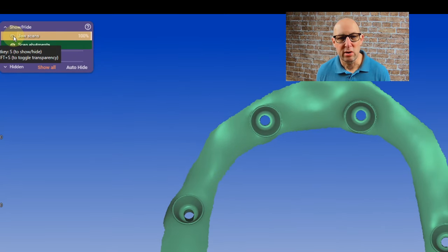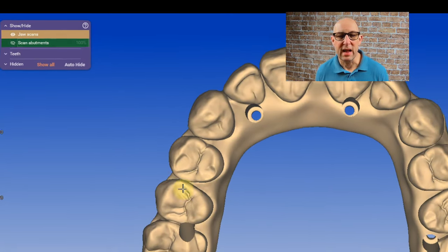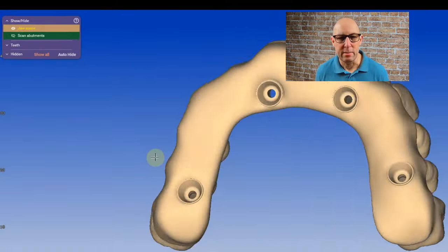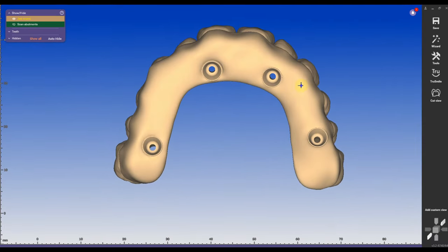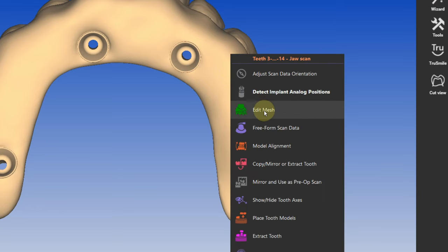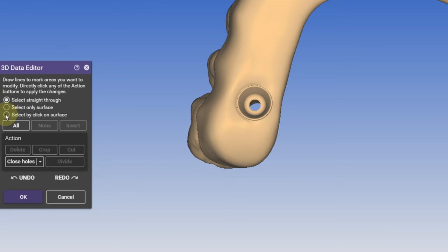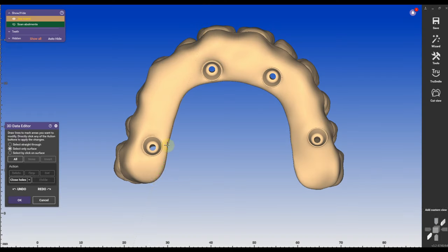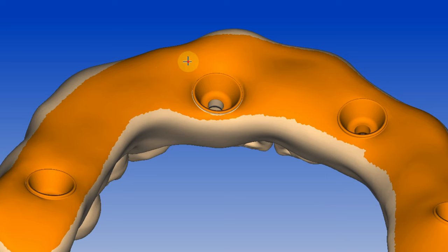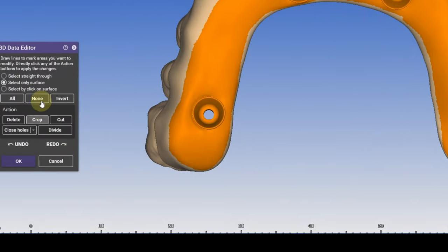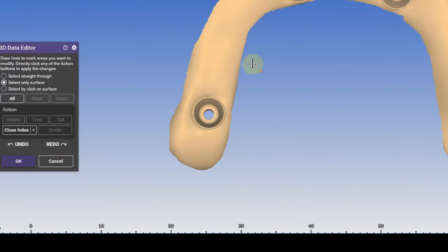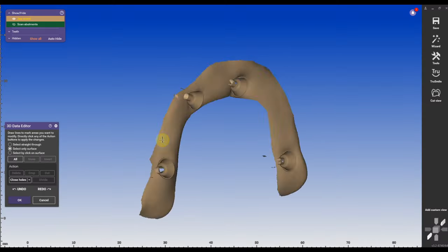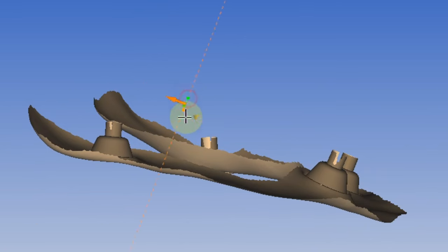I'm going to just turn it around, right click on it and press edit mesh and just before on the scan body side I'm circling around it. It's not so important how clean it is, not so important how well you do this, all we need is a positive side for a jaw. If there are a little bit open areas I'm going to circle those too, invert it, delete it, turn it around again. If you have a couple of floaters select those and delete them.